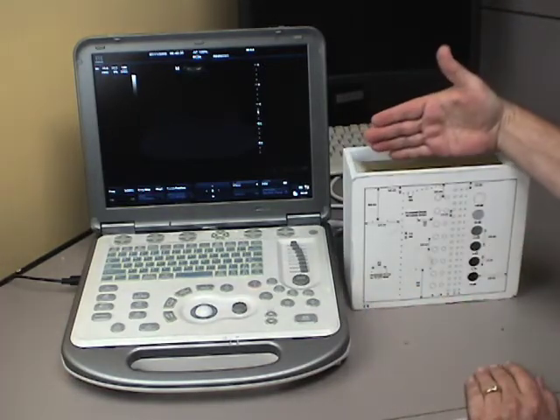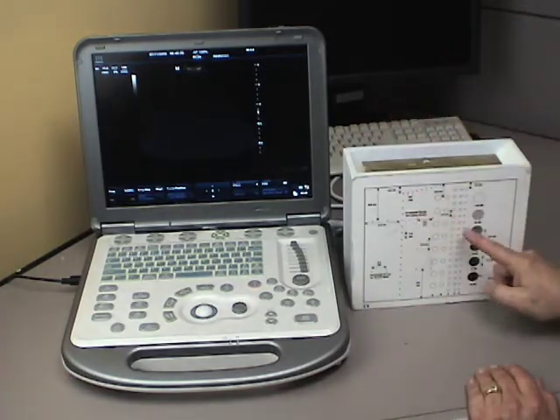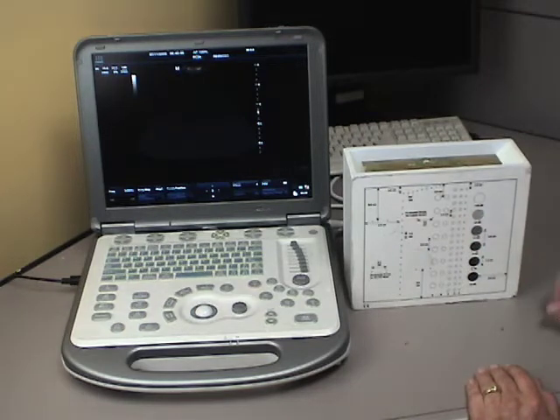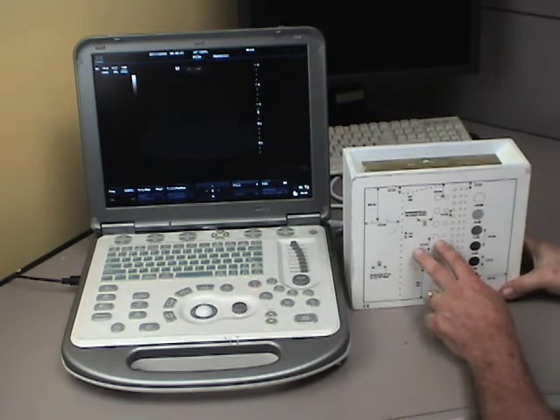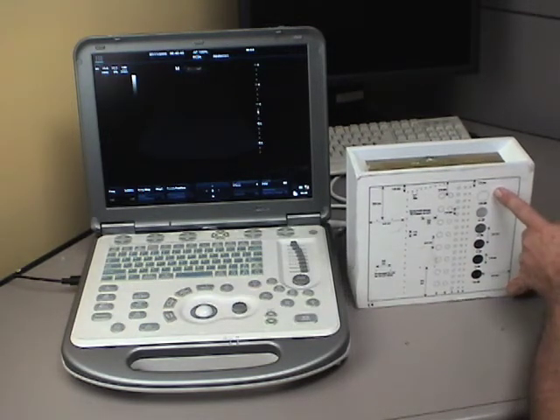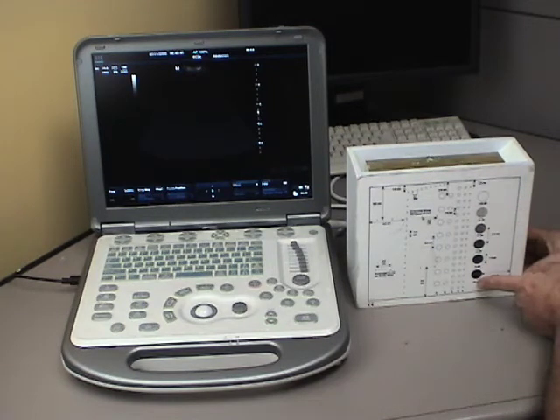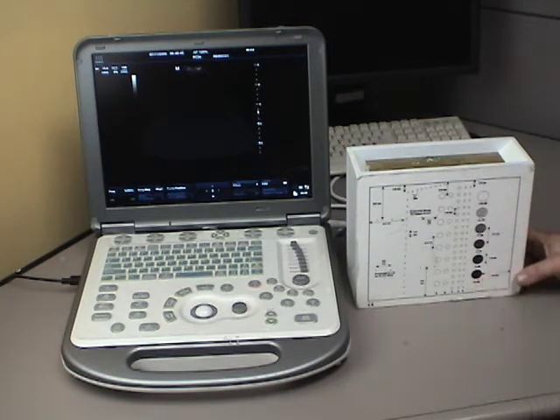When you scan in the plane this direction, what you get is an image that looks just like this. And these items are all put on here to do something different. We're going to scan and see each one of these in a moment, but I'm just going to describe what we have on here.